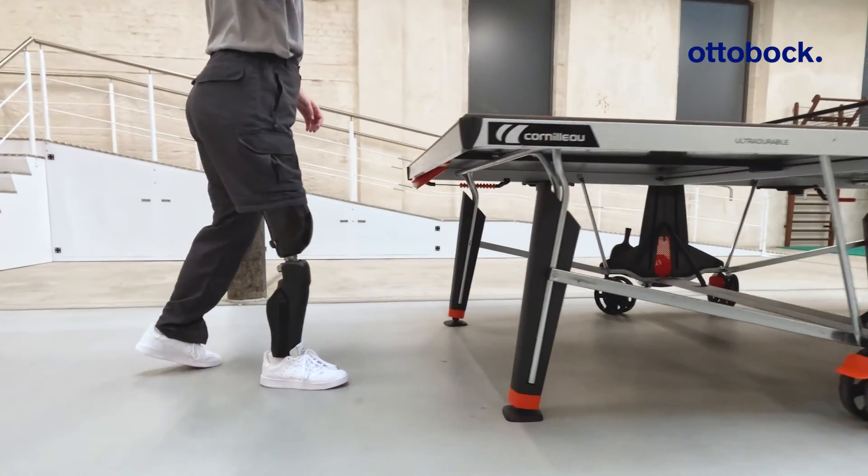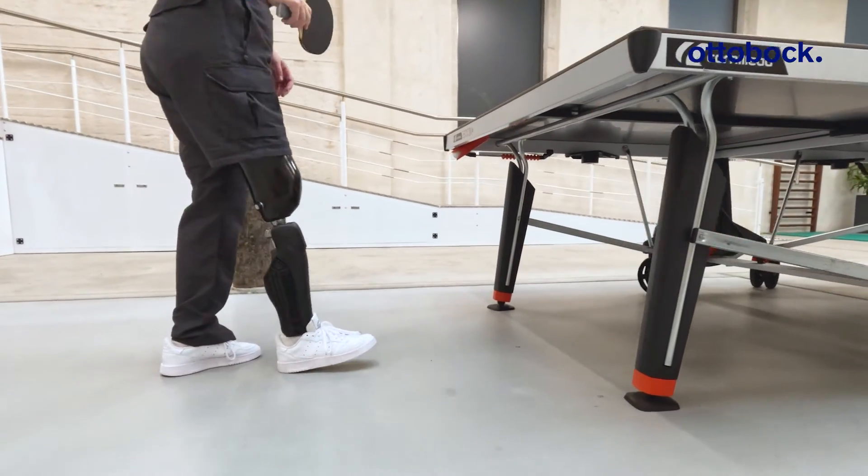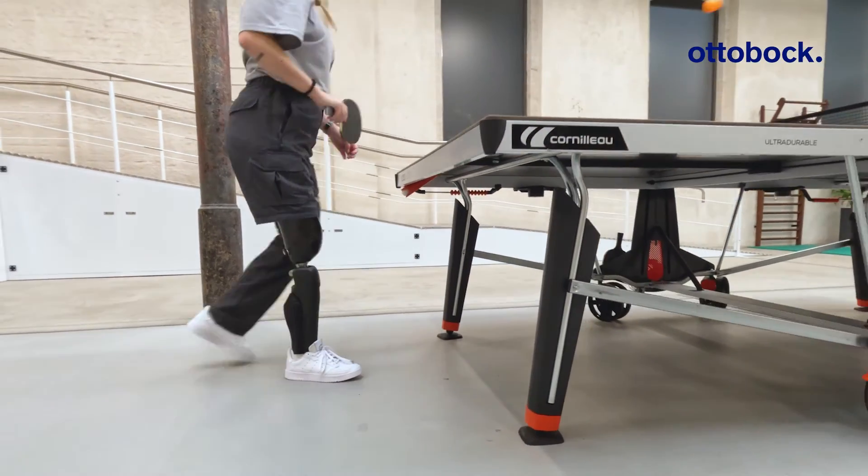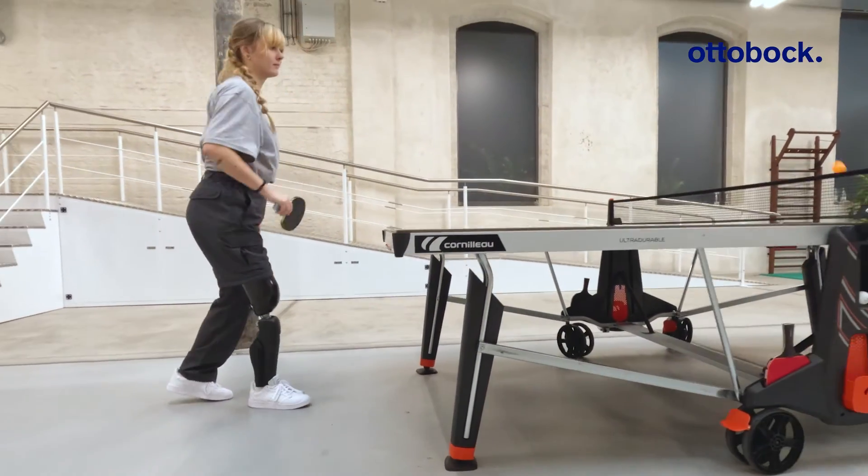MyModes empowers users to perform their favorite activities, such as playing table tennis.